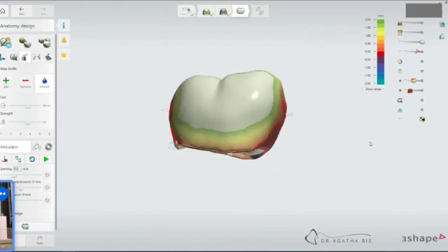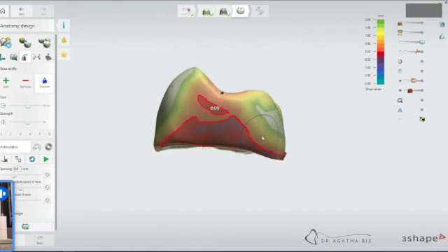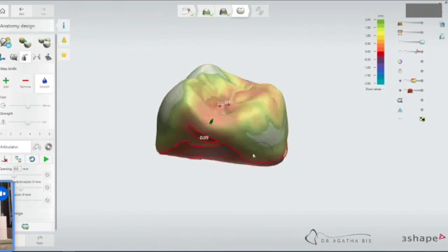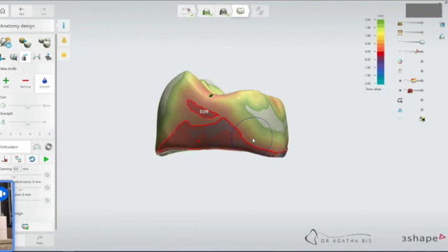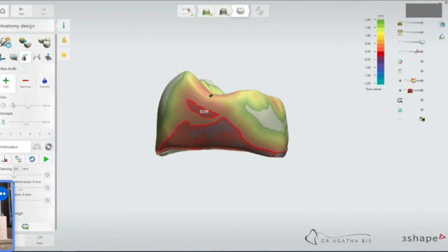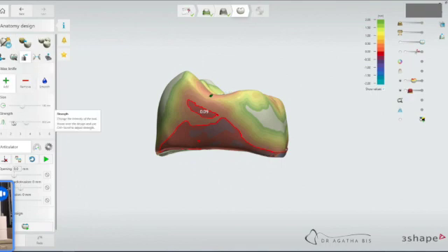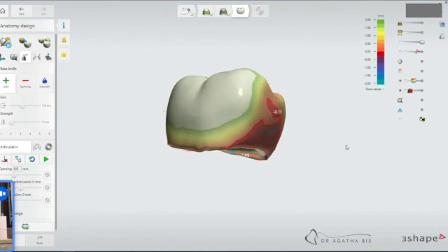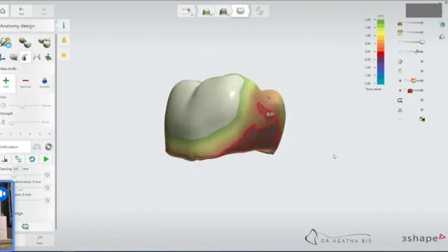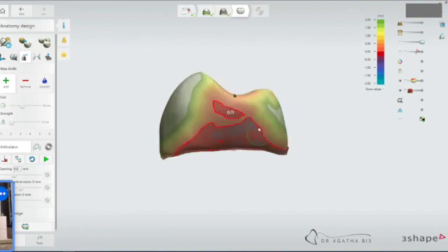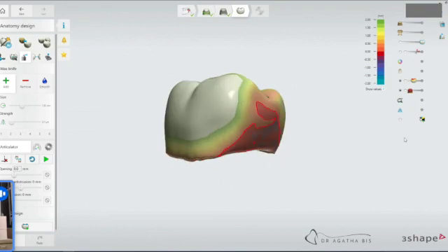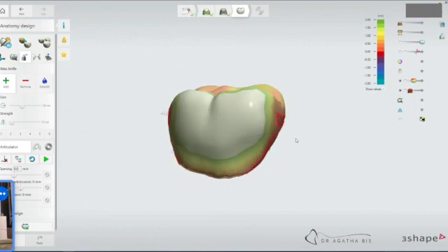And now we've got a nice contact. I would still be happy with this. This is still going to give me a good contact. If not, I can always add a tiny bit. So if you want to make it really, really tight, just go add, maybe make the size a bit smaller, and then the strength a lot smaller. Then you just go click in one spot, click again, until it grows a bit. And now you've got more of a solid contact and you can draw it, paint it in with the wax knife. Make it broader. Now we've got 0.12, probably 0.13. And now we're good.